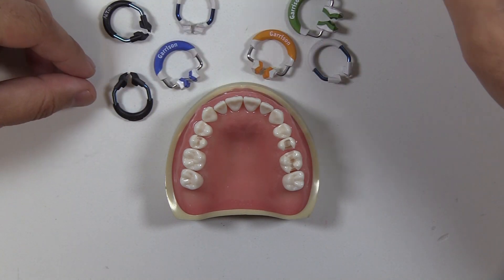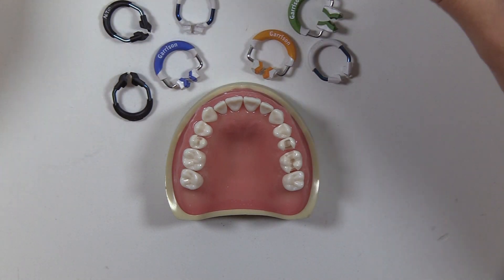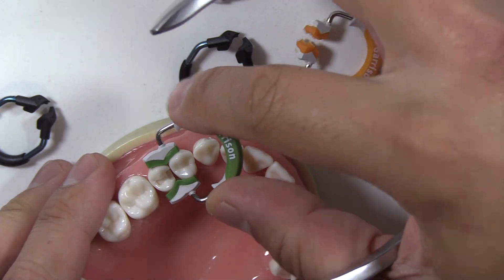One of the easiest ways, without getting too technical into the design of the feet and the arms and the different cushions, is: if it looks right and it feels right, then it probably is right. Trying out different rings definitely helps you find a ring that fits.